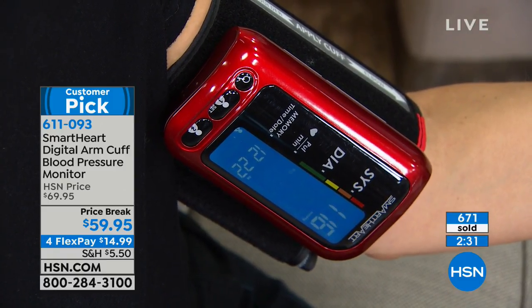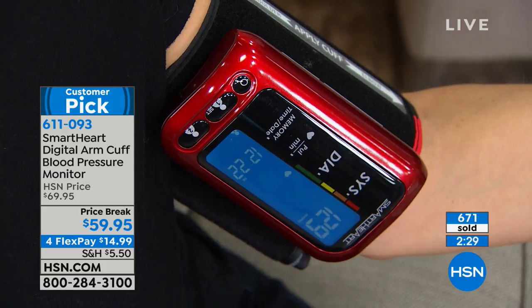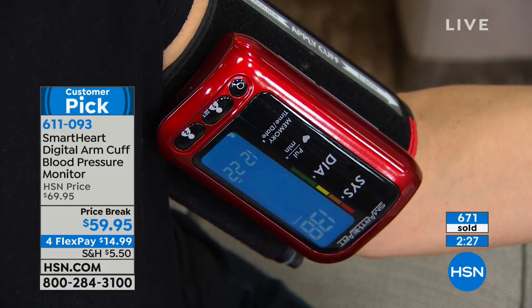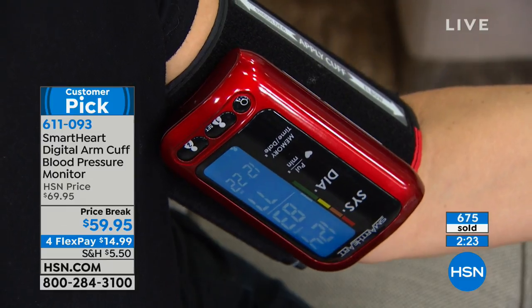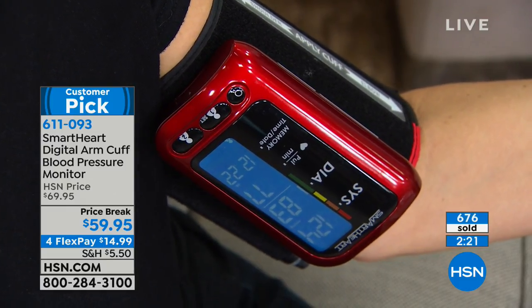Who knows? Maybe you rushed to get there. Maybe you had trouble parking, maybe you're late. Maybe it's the difference between getting medication or not — you feel like you're taking your final exam. All of this anxiety around that one doctor's visit reading is eliminated when you have months of readings stored right here.